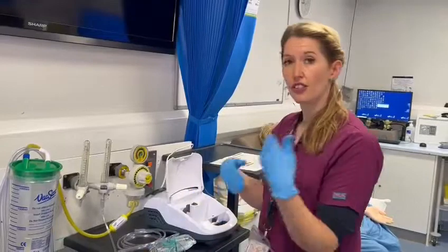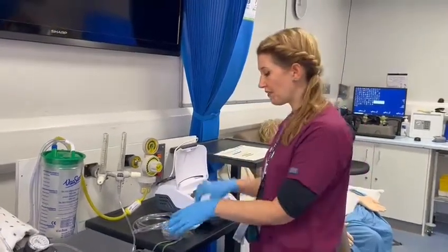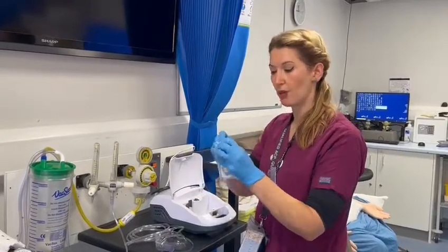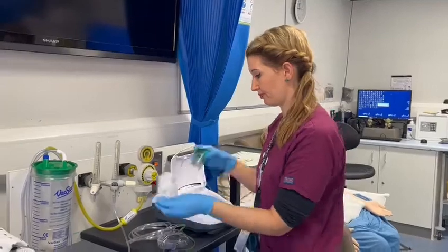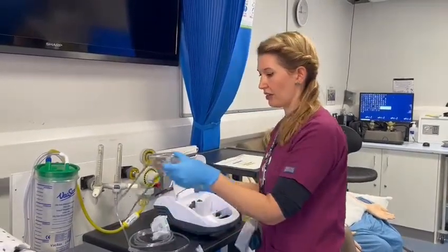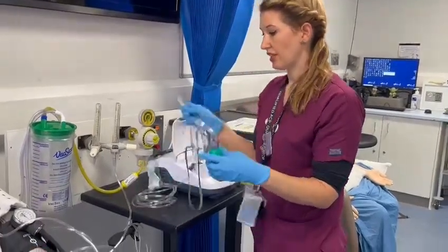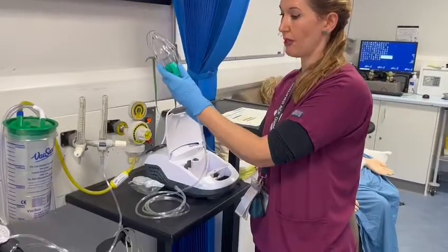You've looked at your prescription and seen what kind of drug you need to deliver, so you get the drug ready and your devices ready. I'm going to open up my nebuliser chamber and connect it to my mask.